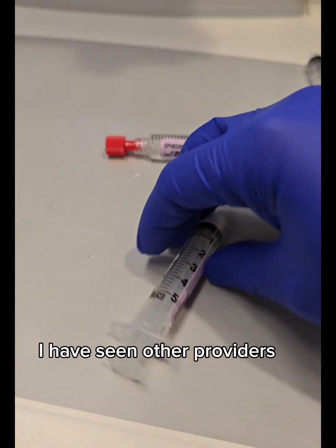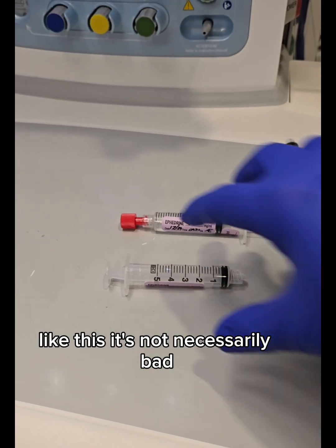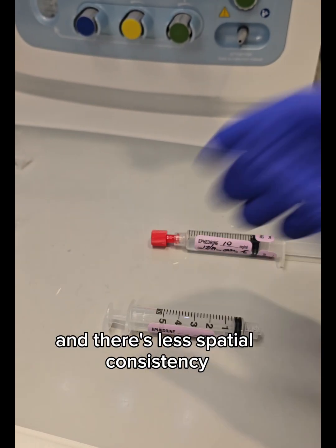I have seen other providers place their labels on the right side of the numbers like this. It's not necessarily bad, but if you place it this way, you have to flip it towards the patient every time, which is a little less efficient and there's less spatial consistency.